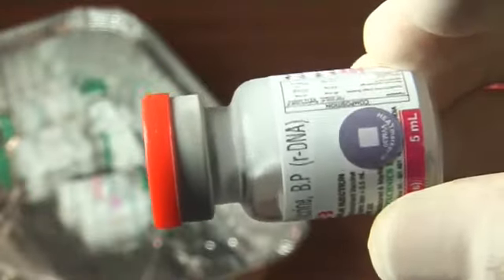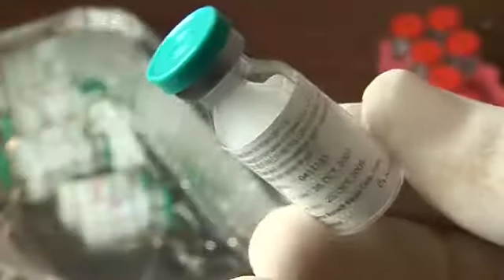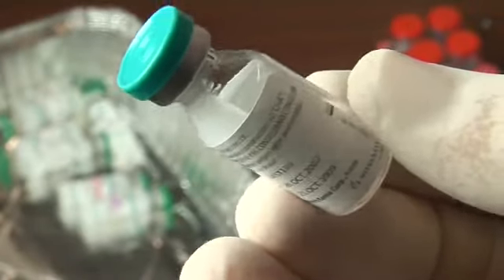The shake test should not be conducted under these circumstances. When the vaccine is already frozen solid, there is no need to conduct the shake test. Such vaccines must be discarded according to standard disposal procedures.